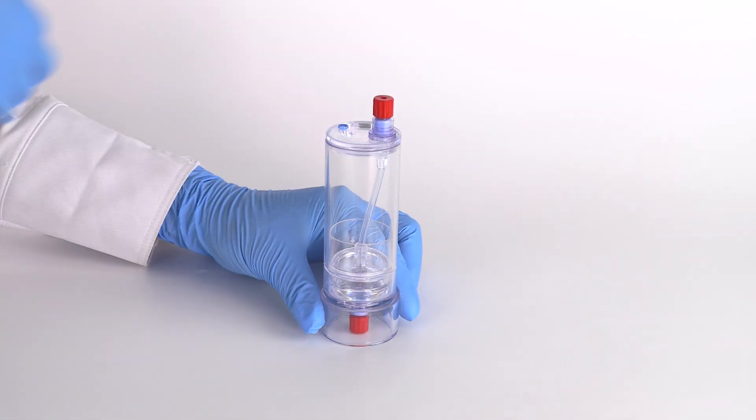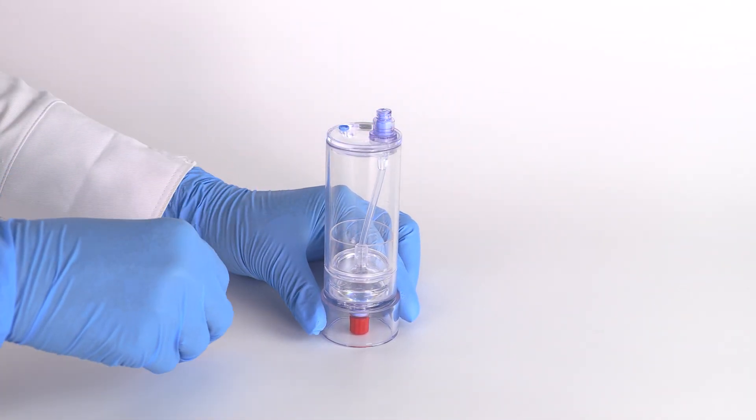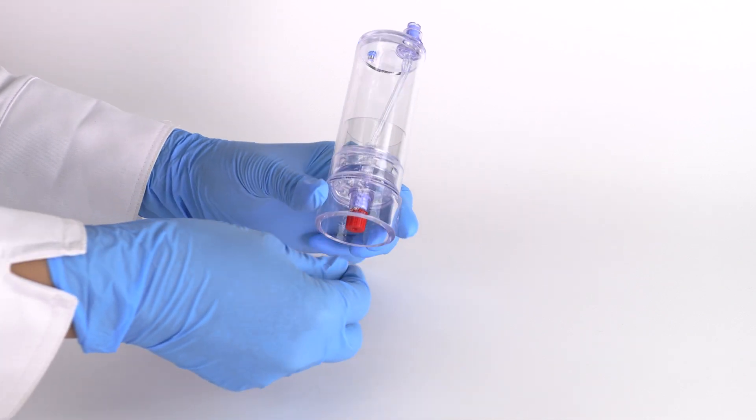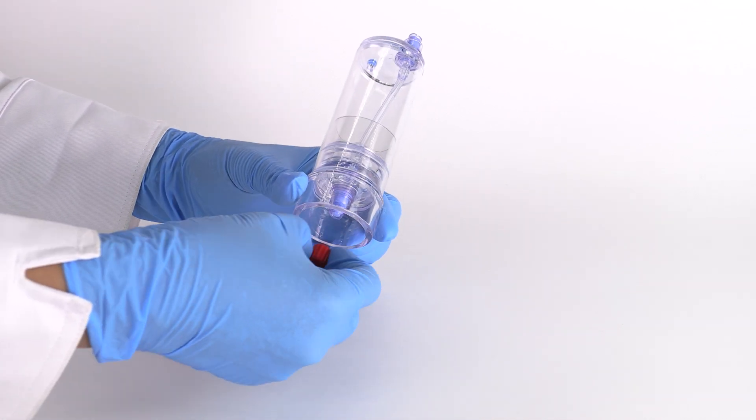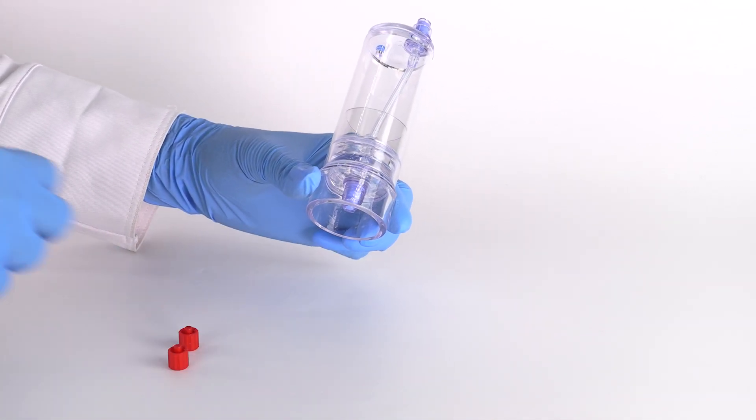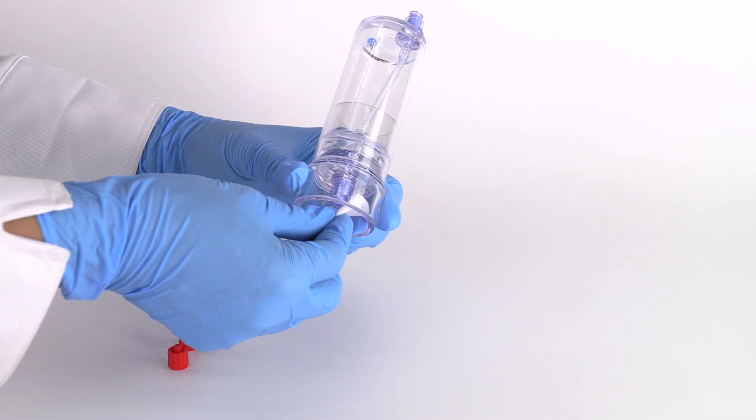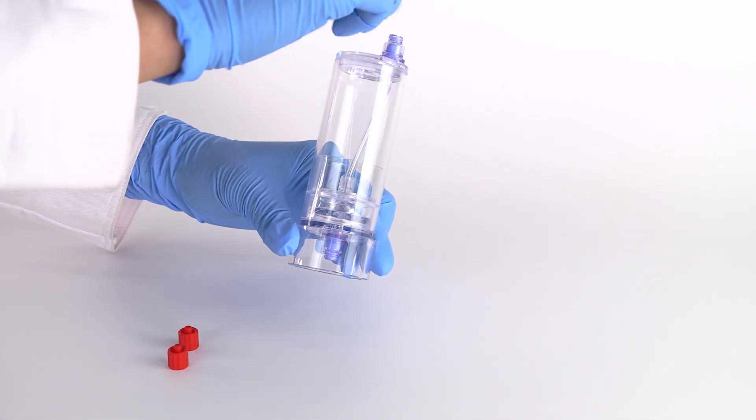To begin, remove the red cap from both the top and bottom needleless valve ports of the device. It is essential to swab the ports with sterile alcohol before and after accessing with a sterile syringe or cap.